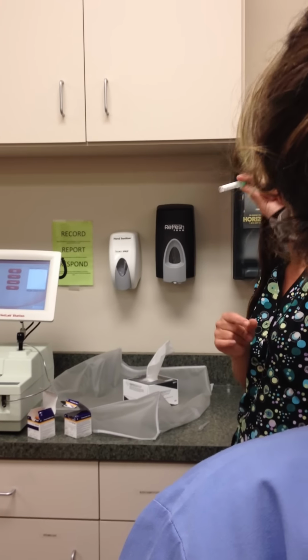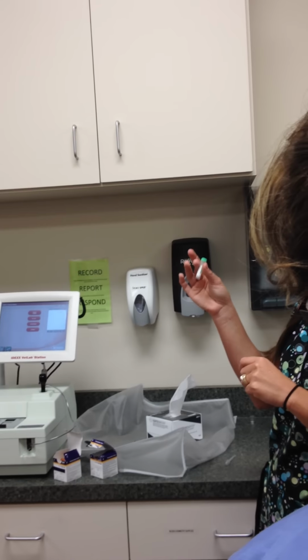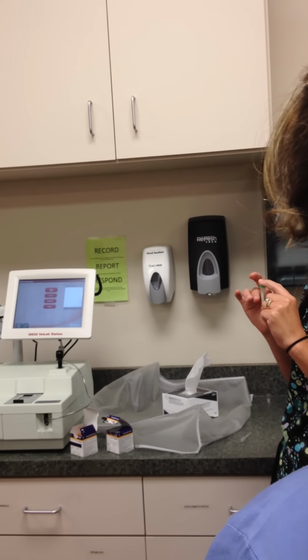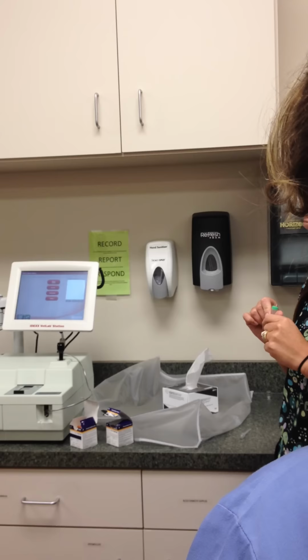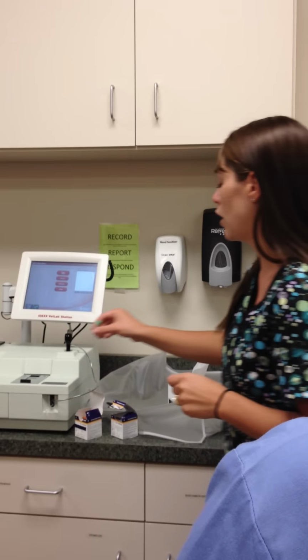You want to have exactly 1.3 in here because you have the little donut in here that is your anticoagulant, and it will throw off your results and dilute it if you do not have the proper amount in here. That's why we make you guys draw 3 mLs. Okay? It's not just to torture you. It's for a real, true, good reason. Okay?